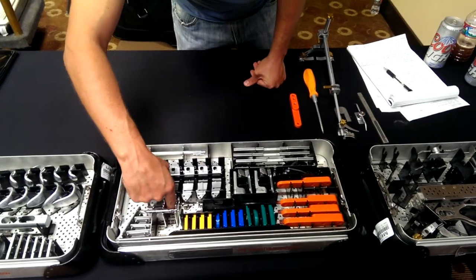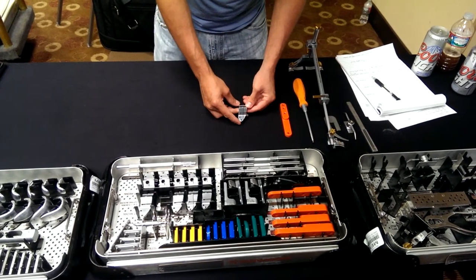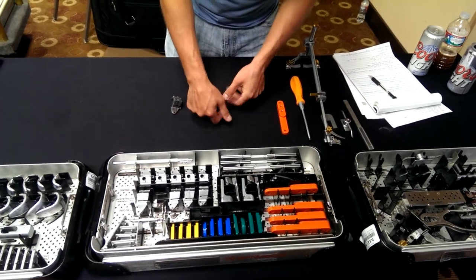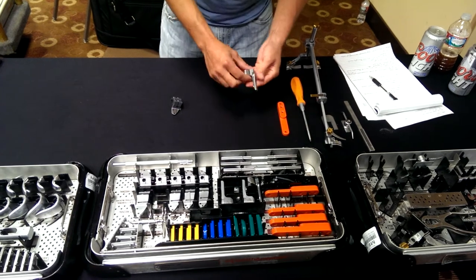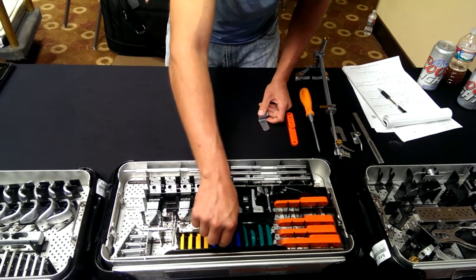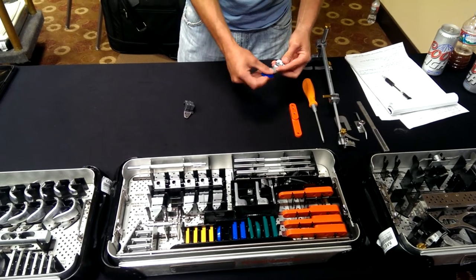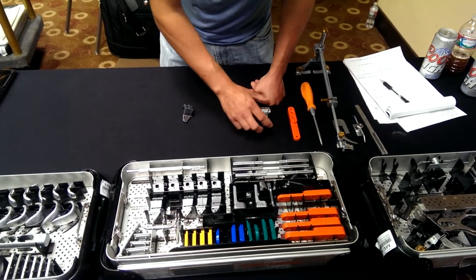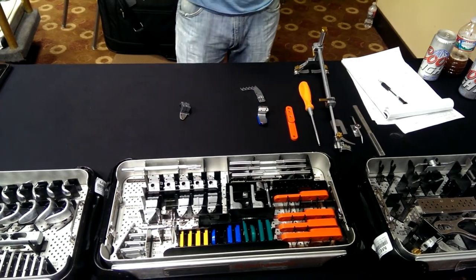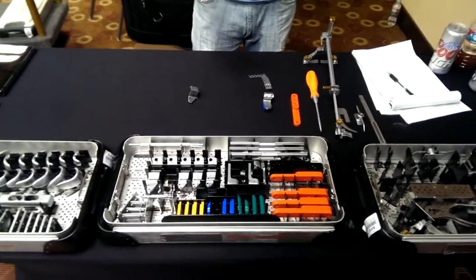And we've got our size 5, size 5 — left medial, size 5 — or left medial distal block with the 3-4-8mm poly. And our hockey stick with our drop rods to check our alignment.